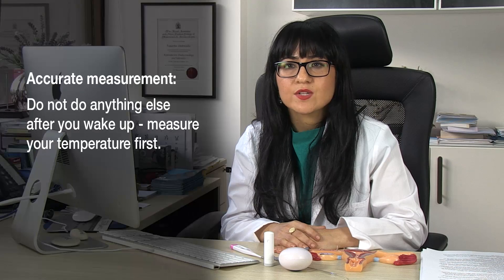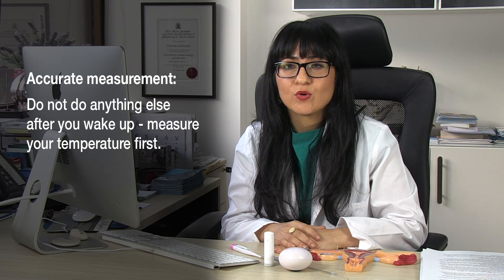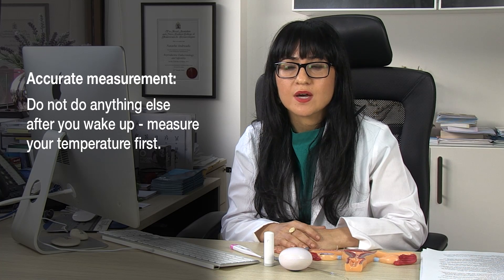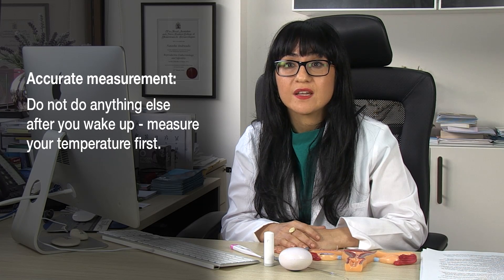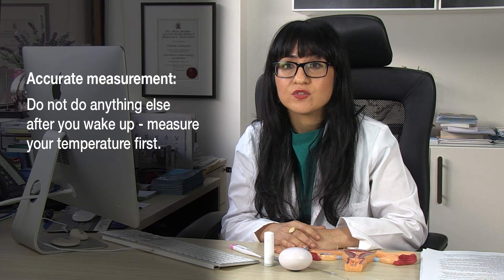Your basal body temperature is really quite sensitive. That's why it's really important that as soon as you wake up in the morning and you've opened your eyes — even before getting up or moving out of bed — you check it. Don't go to the toilet, don't make yourself a cup of tea. Check your body temperature first.